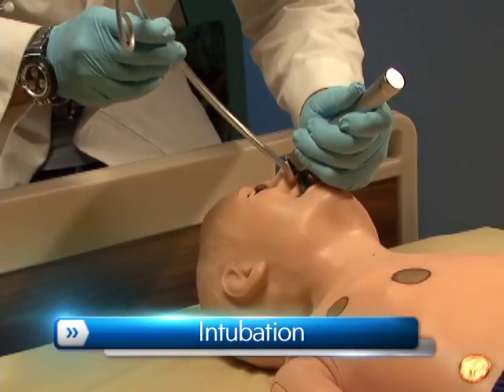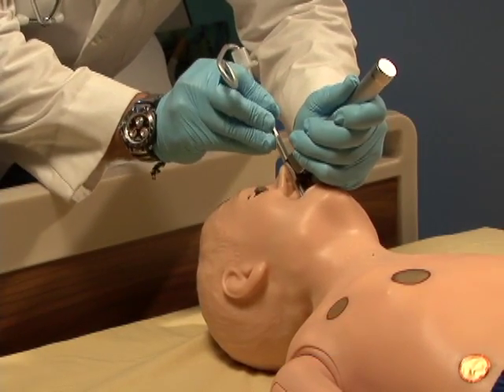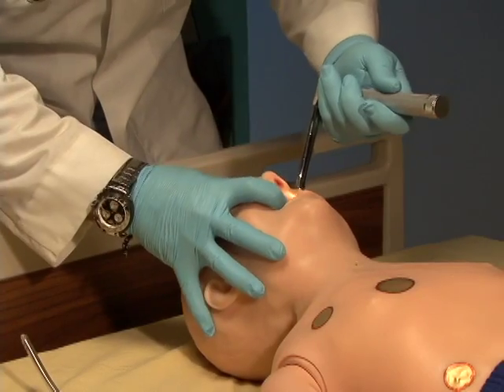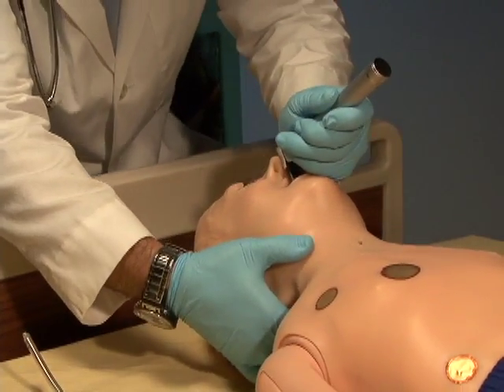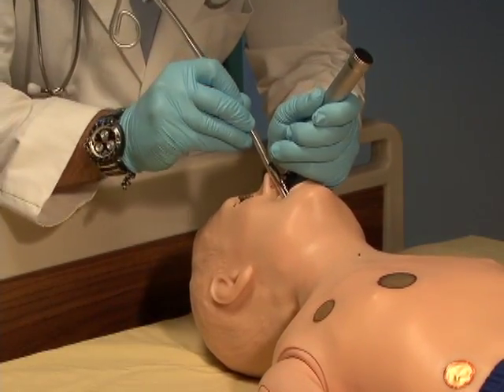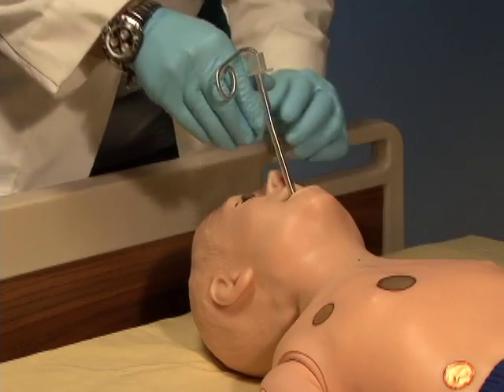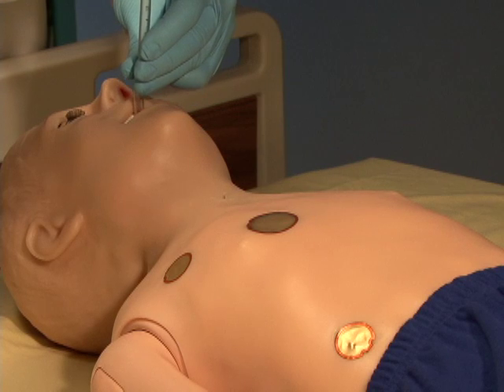Pediatric HAL's airway can be intubated both nasally and orally using an LMA or endotracheal tubes. Intubation can be made more difficult by turning on tongue edema.